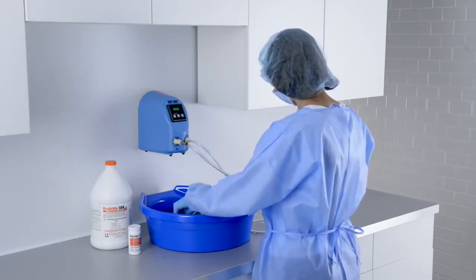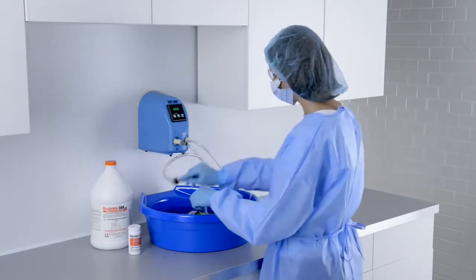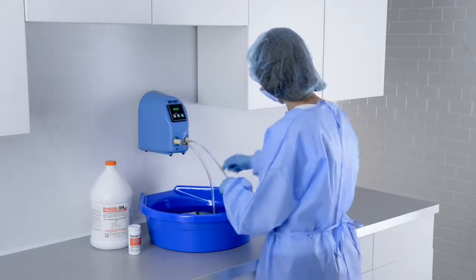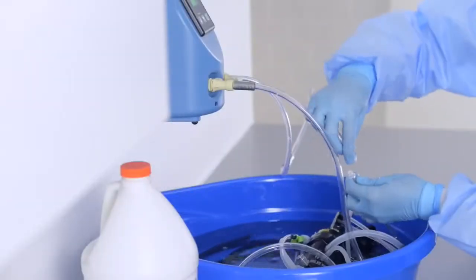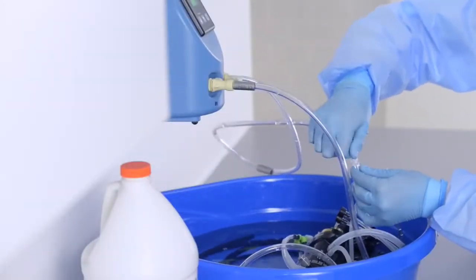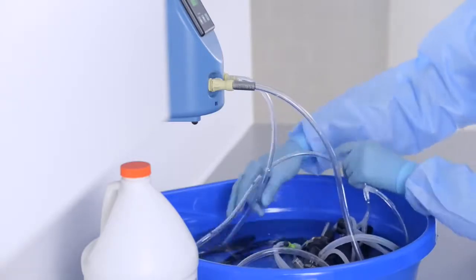Use ScopeBuddy endoscope flushing aid during manual, high-level disinfection to provide constant recirculation of solution through all endoscope channels, reducing worker exposure to harmful chemicals.